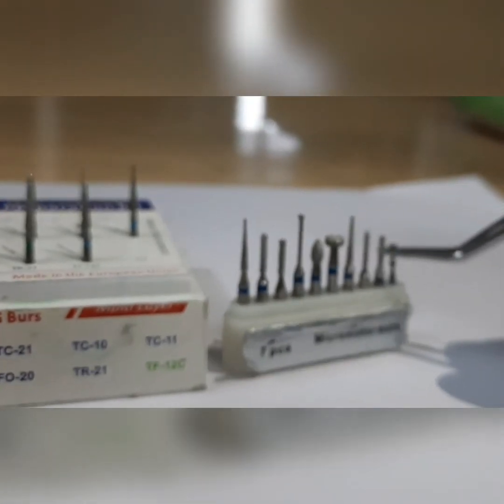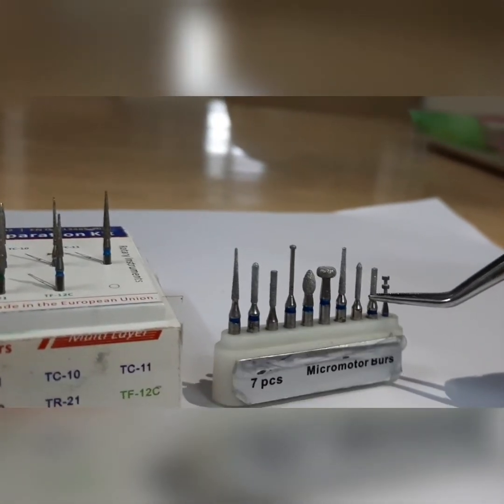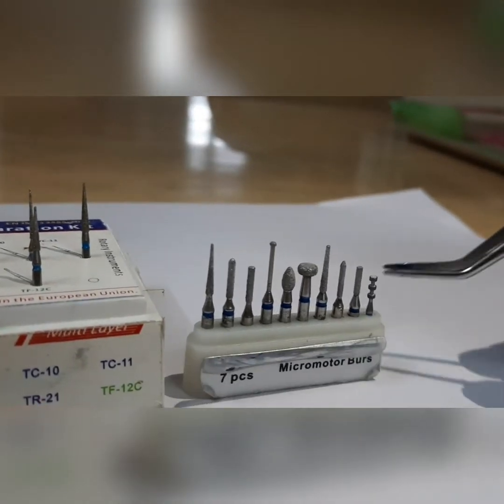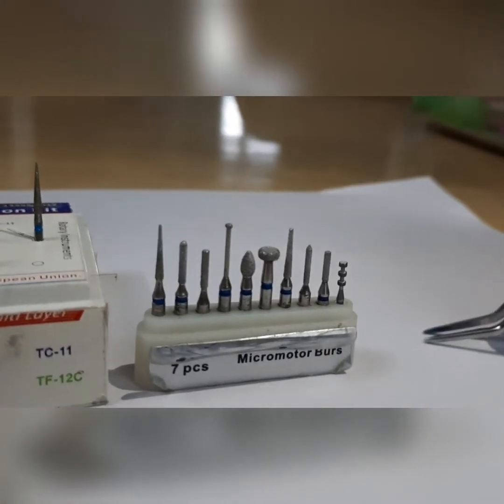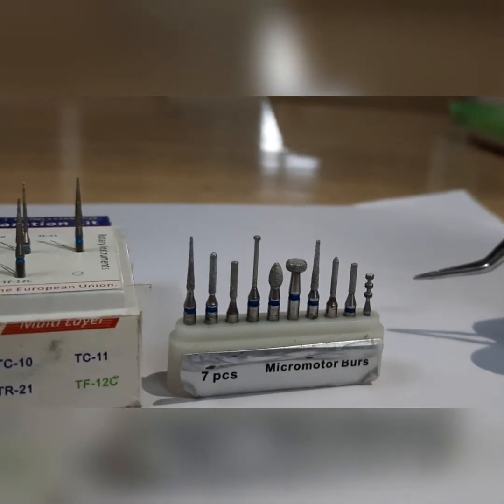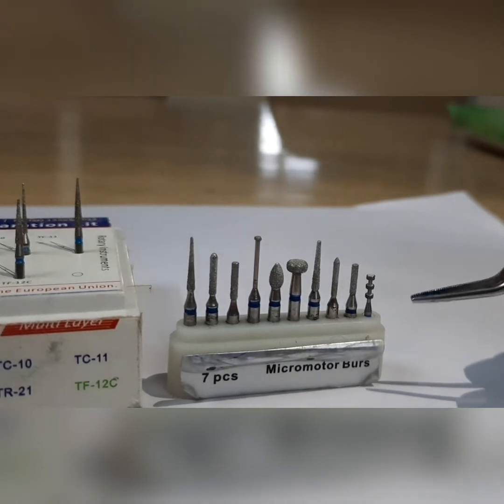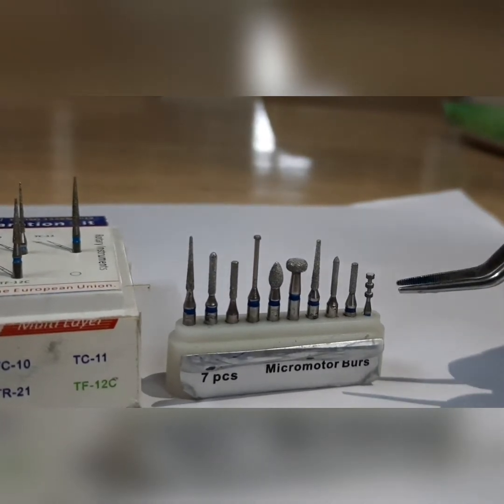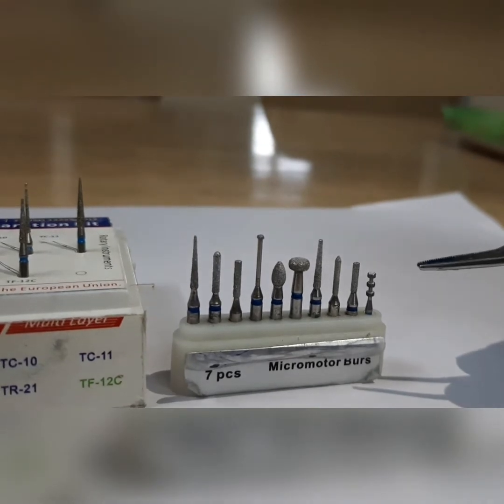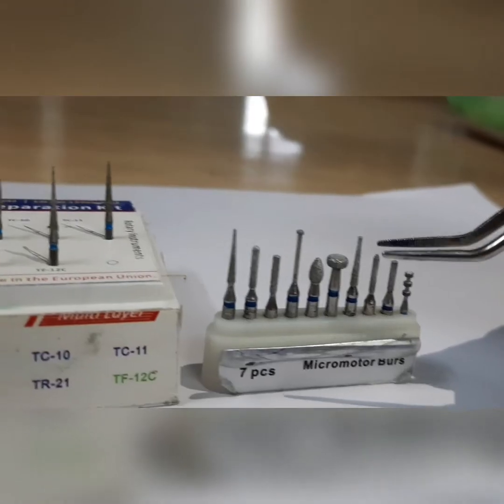The next burr is the flat-ended diamond, that is the shoulder burr. The shoulder burr makes an angle of 90 degrees with the tooth structure. Wherever we have to give more reduction — such as in all-ceramic preparation or porcelain fused to metal on the labial aspect — we will use this burr.